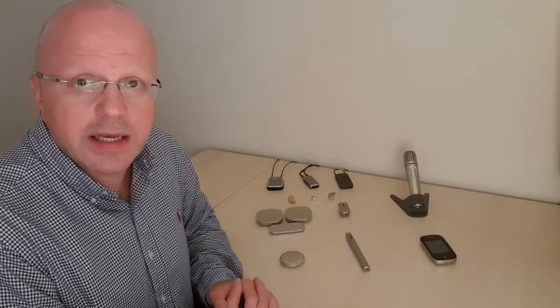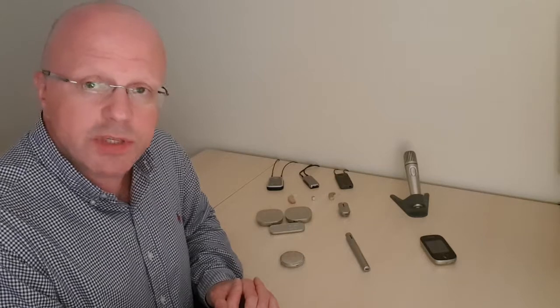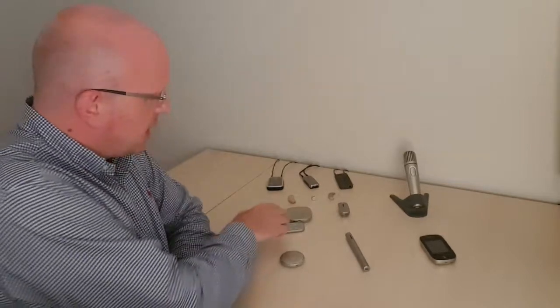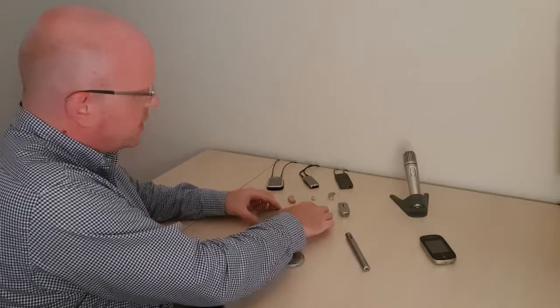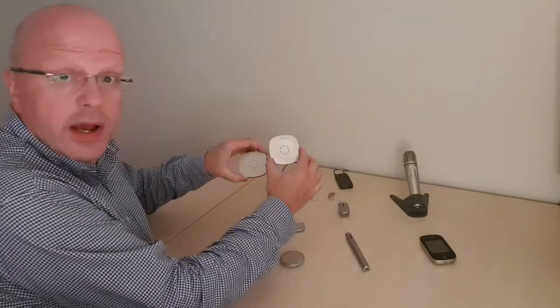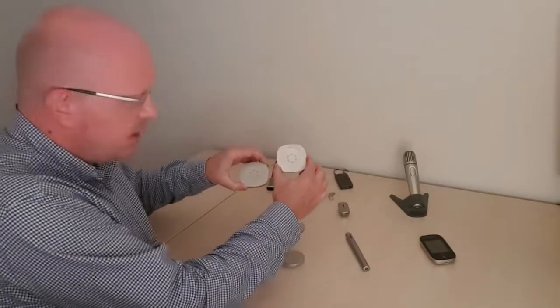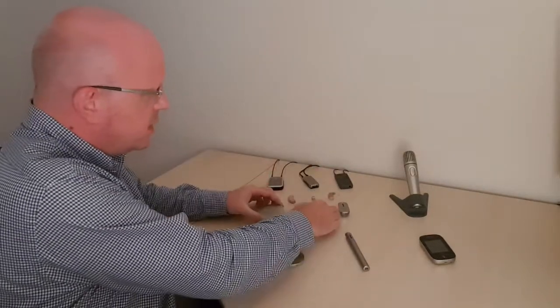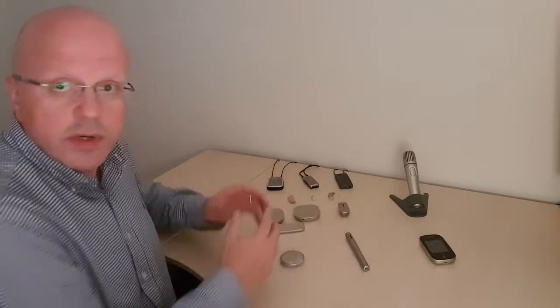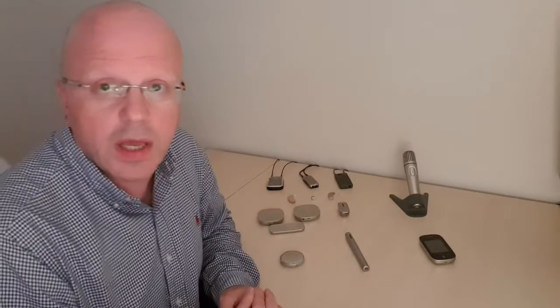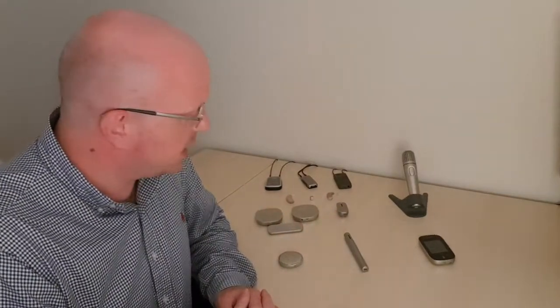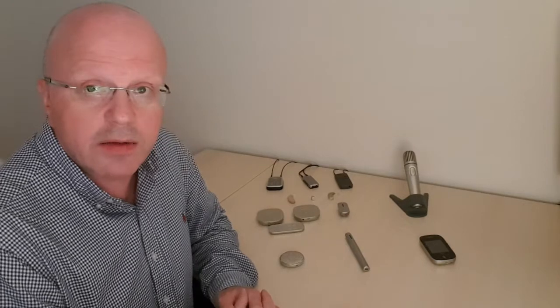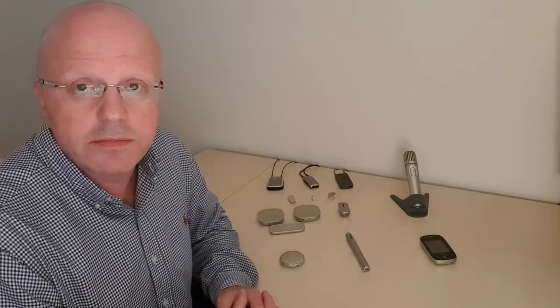Things like table mics. So we've got a pair of table mics here, which are very good to work with large tables. And a single table mic will work with a table, say, up to 15 people.